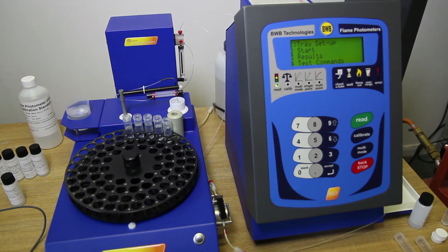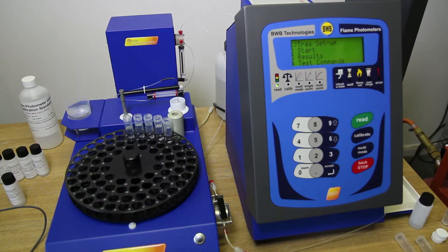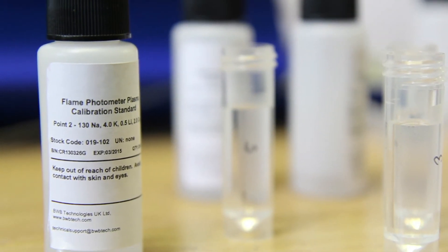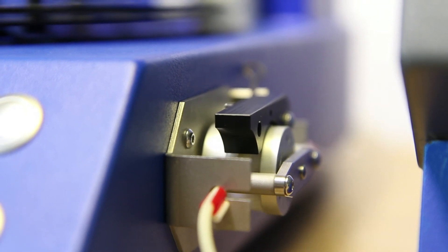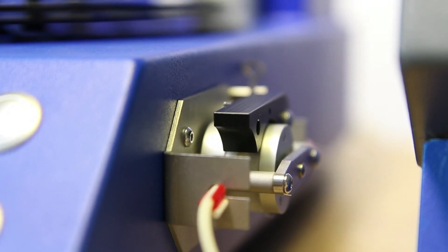Calibration corrections can be carried out individually if required. Calibration solutions are provided for urine and serum. To keep the instrument at peak accuracy, it is recommended to undertake regular calibration corrections.